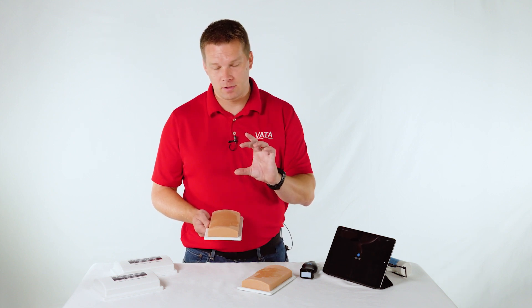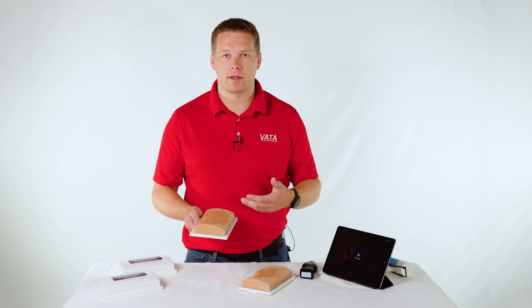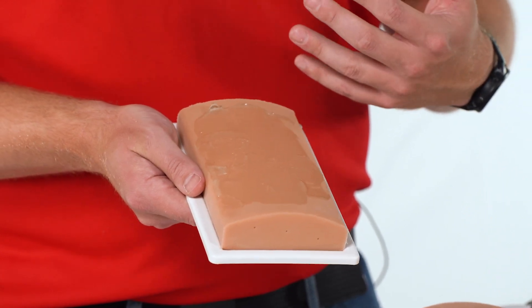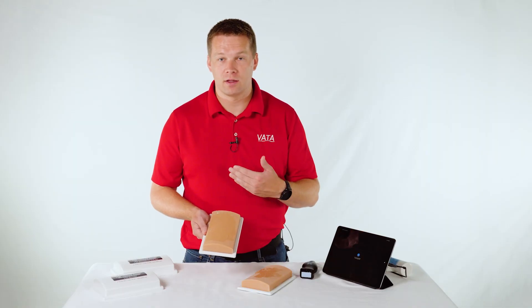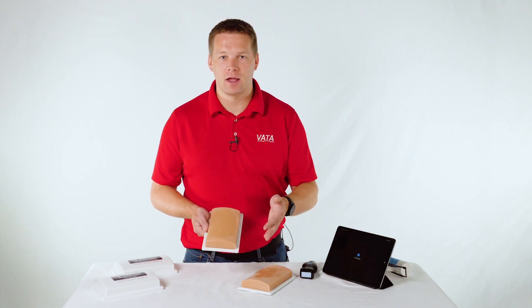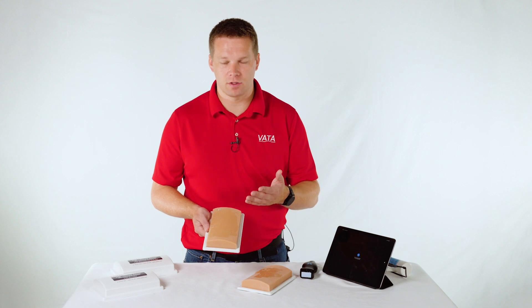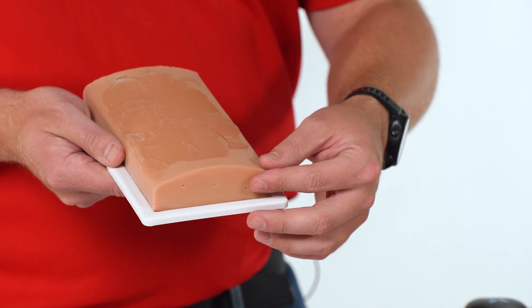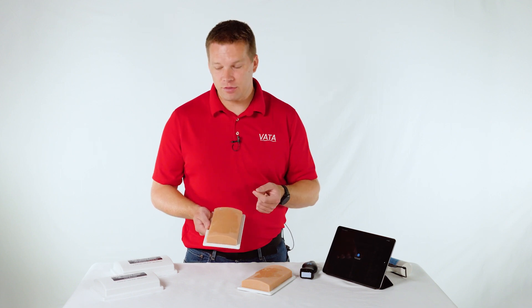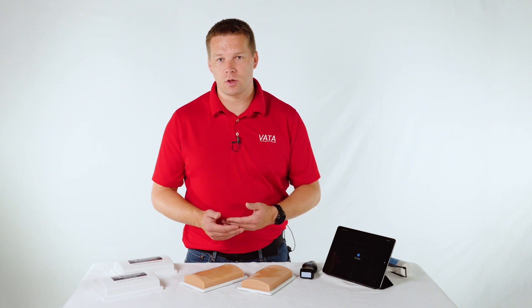The model comes with a little bottle of blood to help you refill it, which should last quite a while. For cleaning: when you're done, wipe the ultrasound gel off while it's still wet — it's much easier than if it dries overnight. If it's dirty, use isopropyl alcohol or soap and water. Let it dry completely, then apply a little bit of baby powder — that keeps the surface soft and prevents a slight sticky feel.